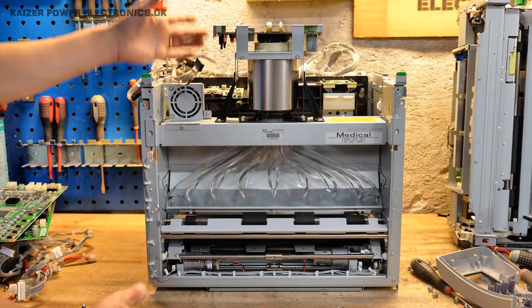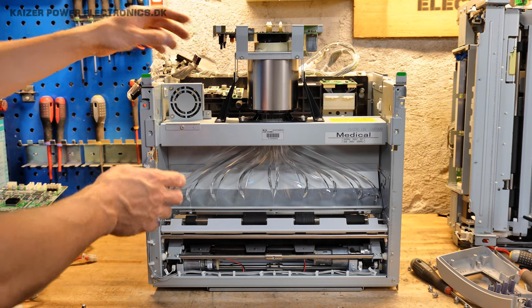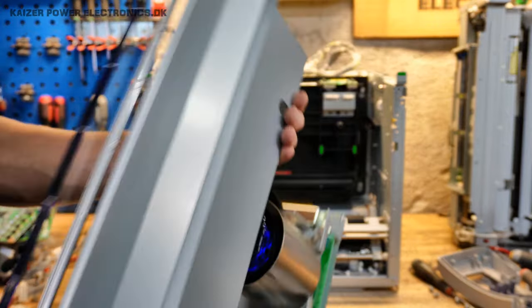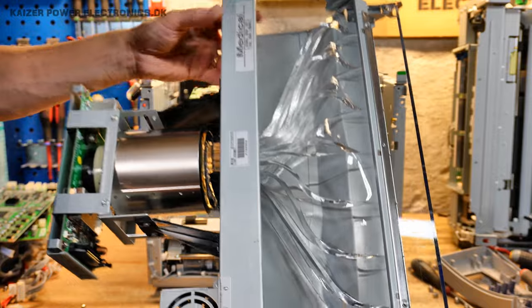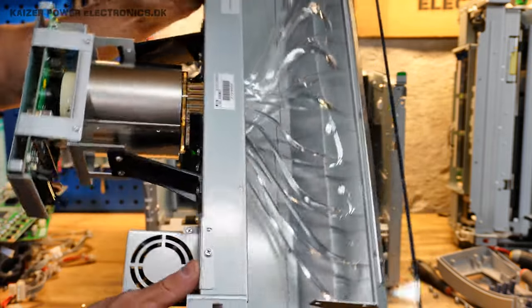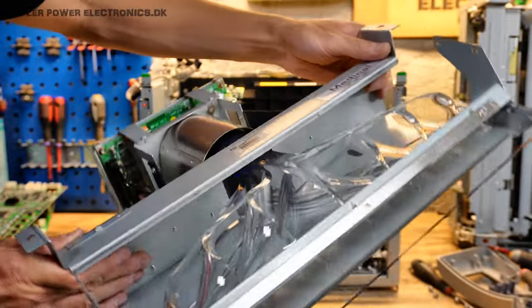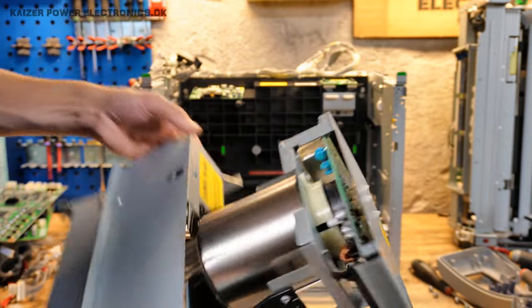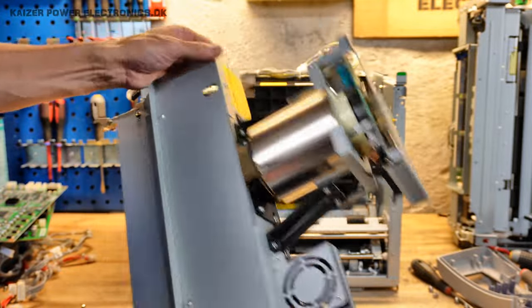With the whole enclosure out of the way, we now have the light assembly, which just sat with six screws in total. I can actually lift this out. Look at that — that's not something you just bend in your workshop, and it sits in this gooey substance. I looked up the PMT assembly I took apart earlier — that was a PMT-12A. This is a PMT-26A, so this is a much newer device. It has high voltage modules in there. This whole assembly is a project for a whole other video — to get it reverse engineered and working for particle detection.